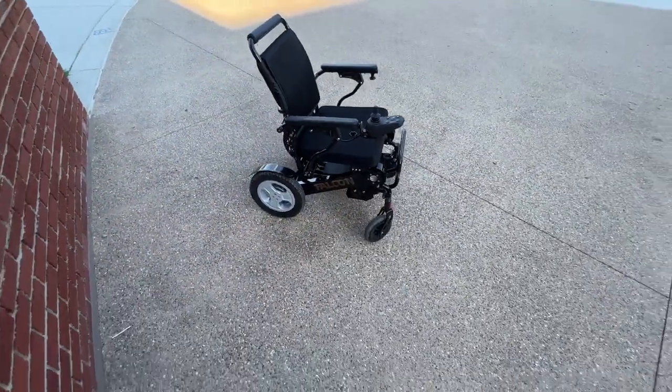I'm demonstrating use and utility. I'll speak about gimmicks relatively soon - chairs that have gimmicks. A lot of this is functional with just one hand, and we have a foot rest that folds out flush with the chair. I want you to really take note of where the foot rest is right now on the chair. That's going to become very important in a few minutes when I discuss gimmicks and how to avoid falling into the trap of gimmicks.